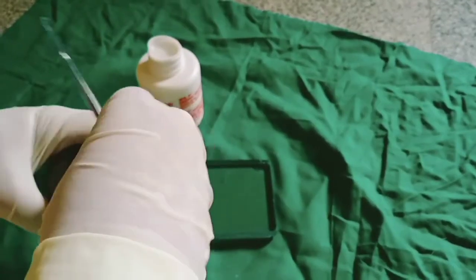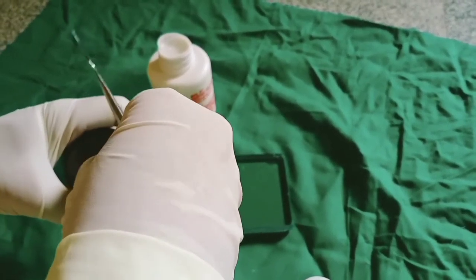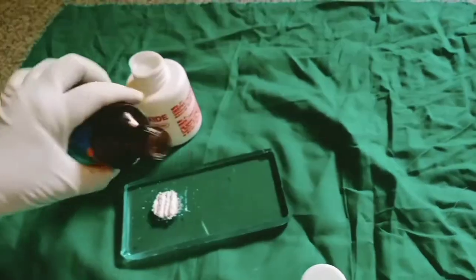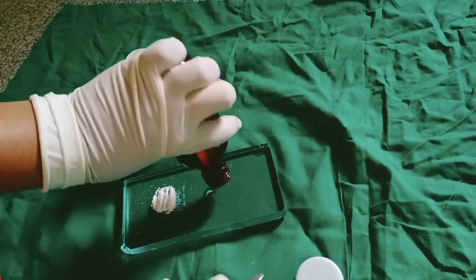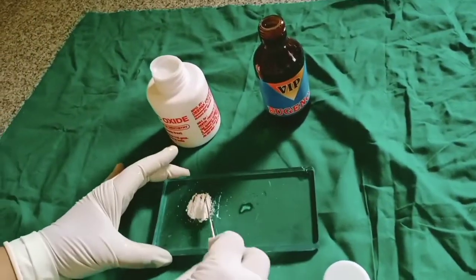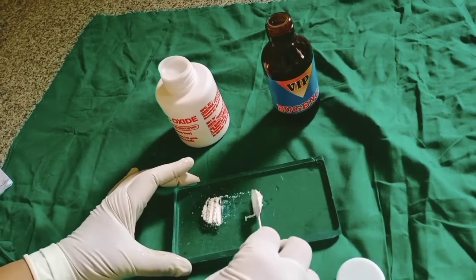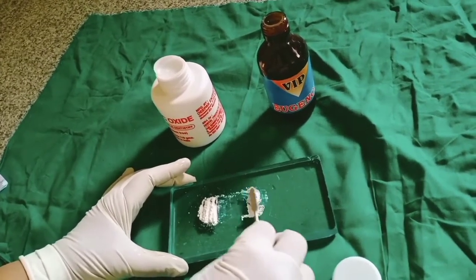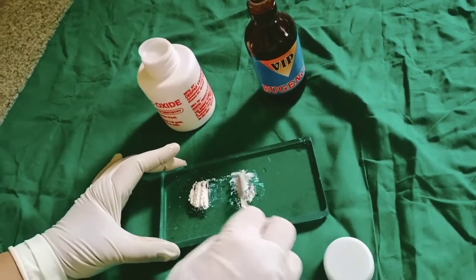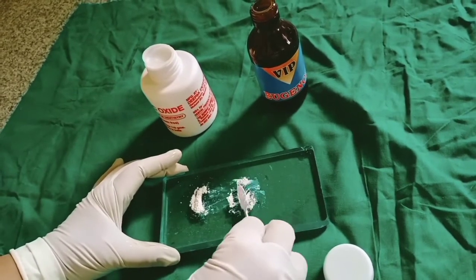Take the liquid and dispense — depends on the requirement. Take half of the first increment. It should be mixed in a circular pattern. Take half of the first increment and continue mixing.